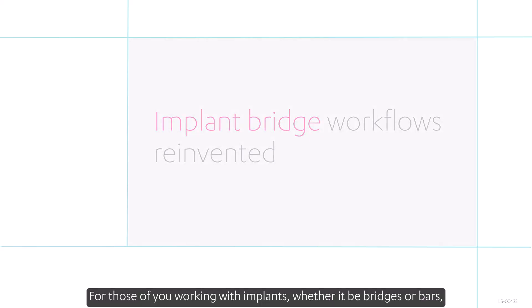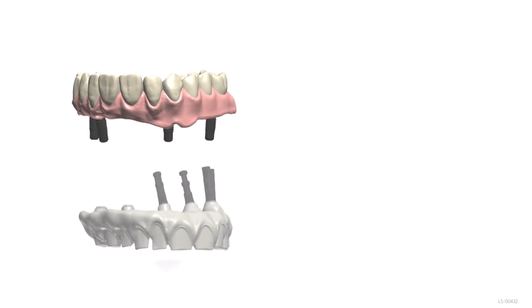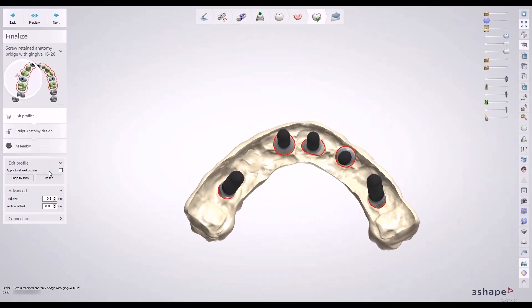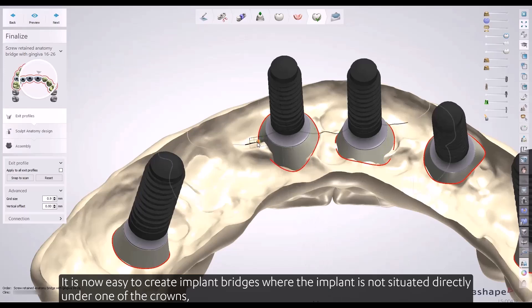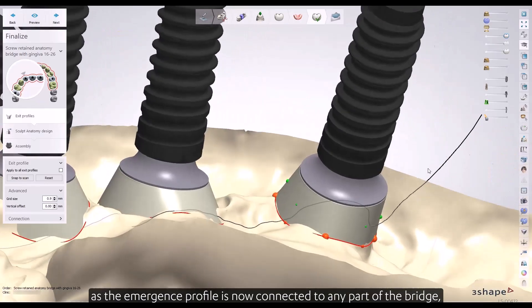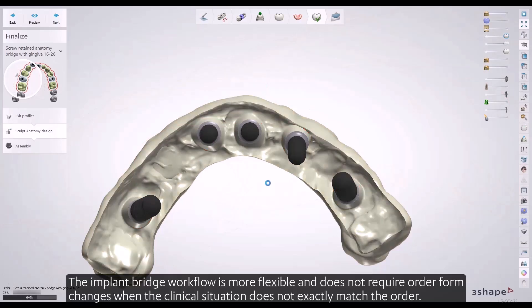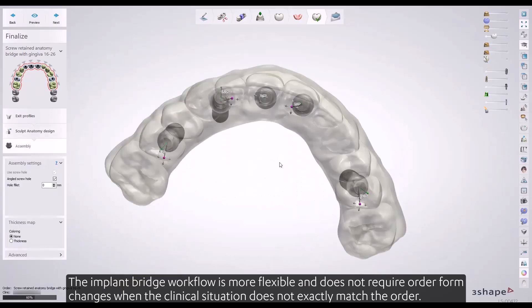For those working with implants — whether bridges or bars — plenty of new tools have been introduced. Improvements in implant bridge workflows started in 2020 and have continuously improved. It's now easy to create implant bridges where the implant is not situated directly under one of the crowns, as the emergence profile is connected to any part of the bridge. The workflow is more flexible and does not require order form changes when the clinical situation doesn't exactly match the order.